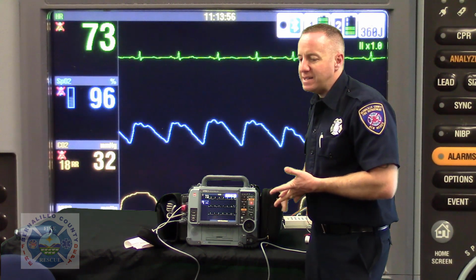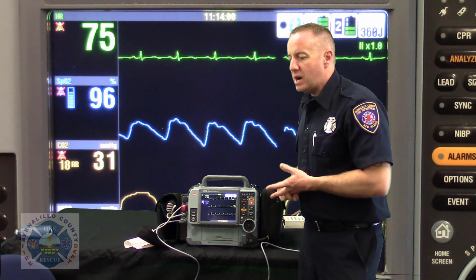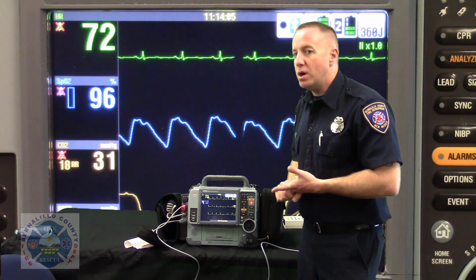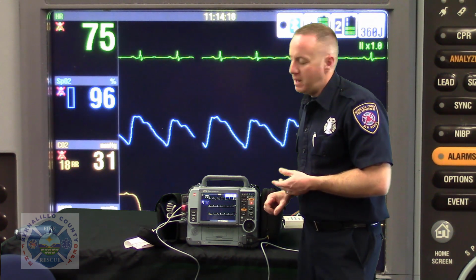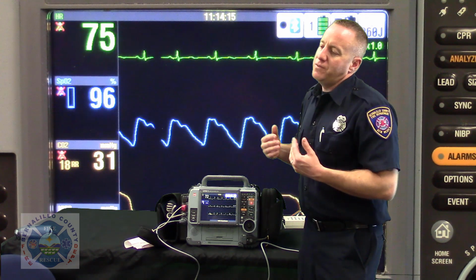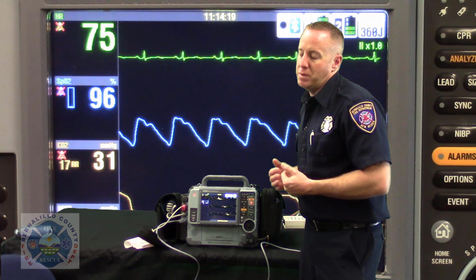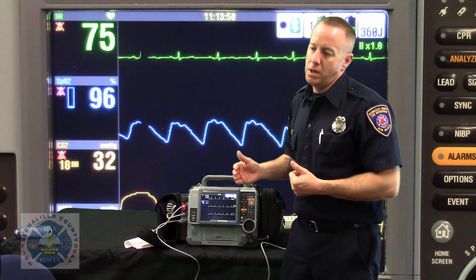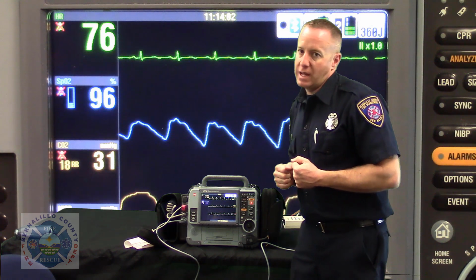And the one thing that has to be correct is that the patient's name is printed out at the hospital on that EKG correctly, spelled correctly, and that the patient's date of birth, age, and gender are also visible on that 12-lead. If we miss that step in our data entry on scene, then we've just taken a very, very wonderful service away from that patient. We may have actually delayed something which is designed for us to shorten, which is first medical contact to reperfusion therapy in the cath lab.